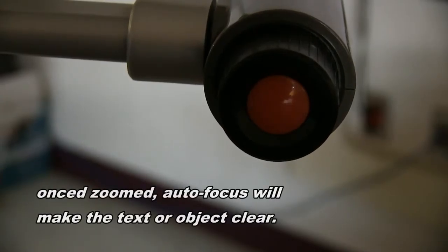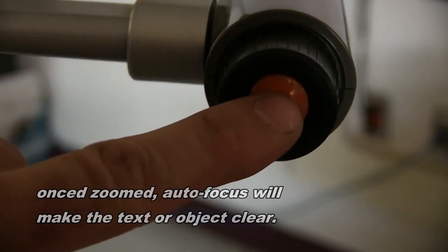Once zoomed in or out, you can press this orange button to auto focus the object or the text.